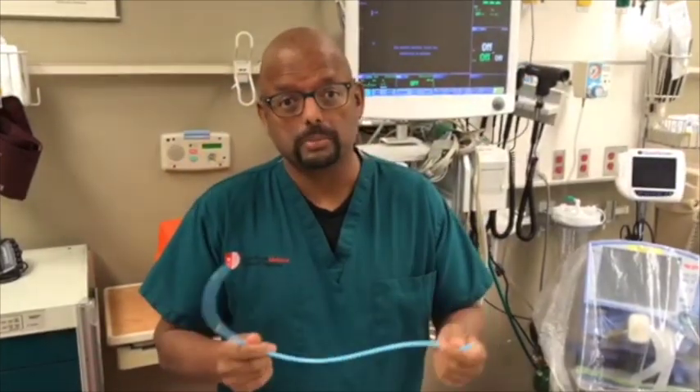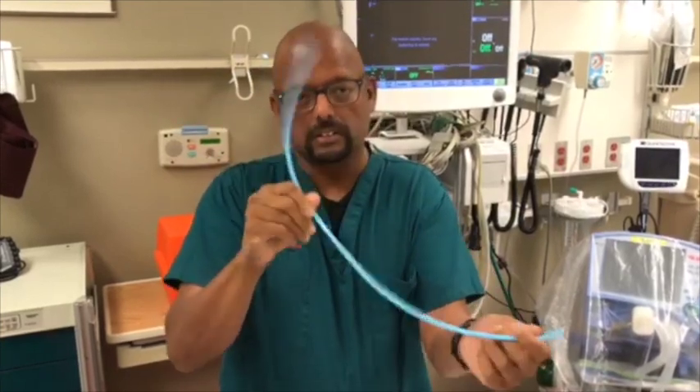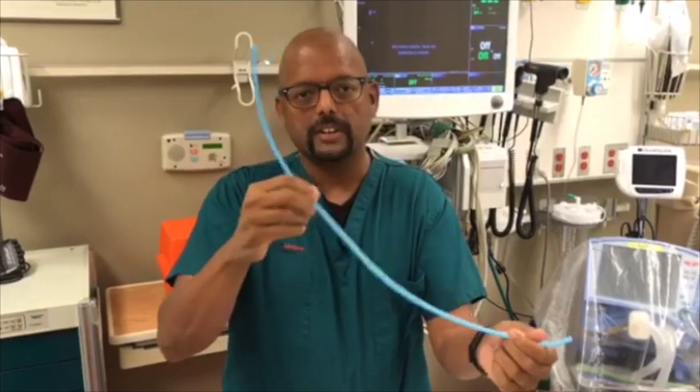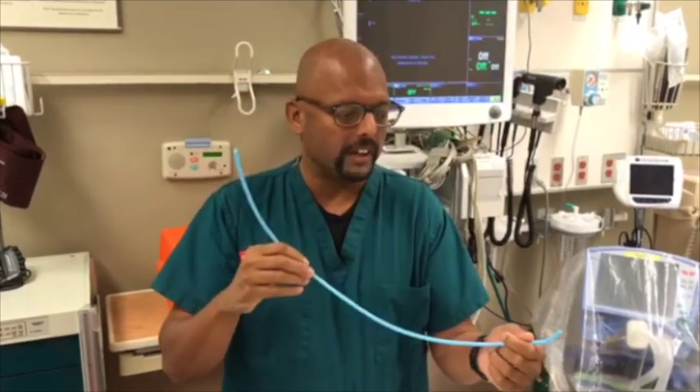Do not retract your bougie — leave it there. The move is usually to turn the bougie to get past that obstruction. This twisting movement with the fingers that I was taught, I find very awkward. I have a hard time doing that and getting in enough force to really move that tip.